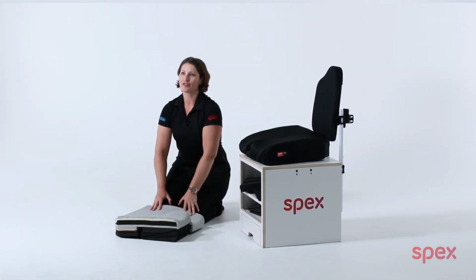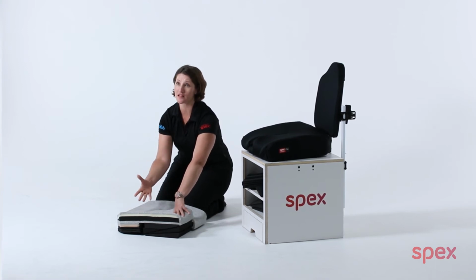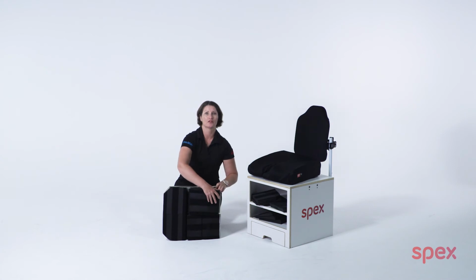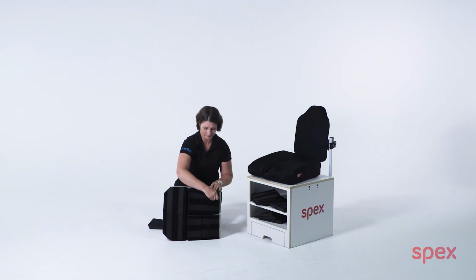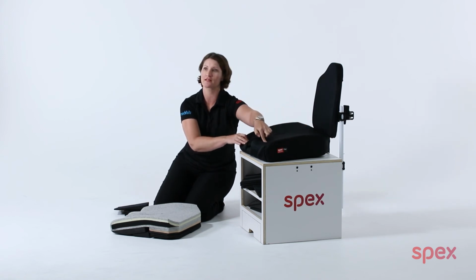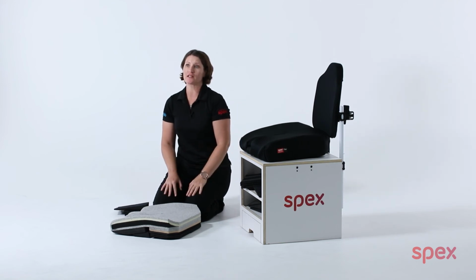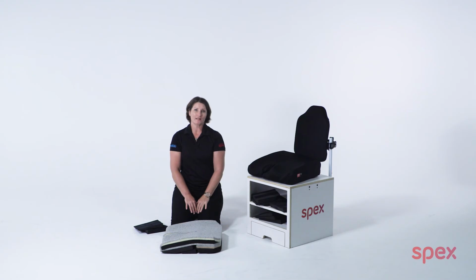To accommodate hip flexion limitations, we want to lower one of the thigh support legs of our flex cushion underneath the affected leg. Remove the wedges under the cushion to the required amount. Replace the covers and assess that contact is possible throughout the length of the thighs and across the pelvis. If you need to adjust the other leg for stability by either raising or lowering it, this can be done also. Once a stable position is achieved, secure the covers.